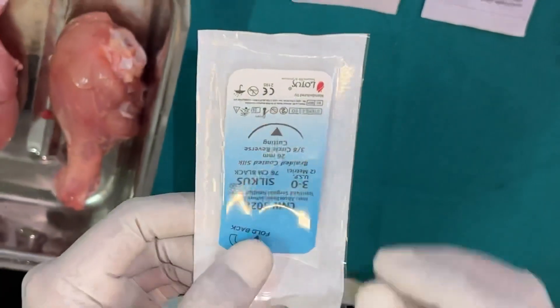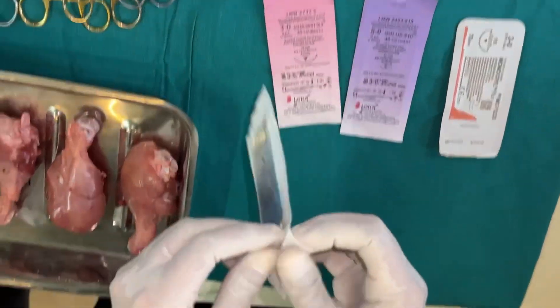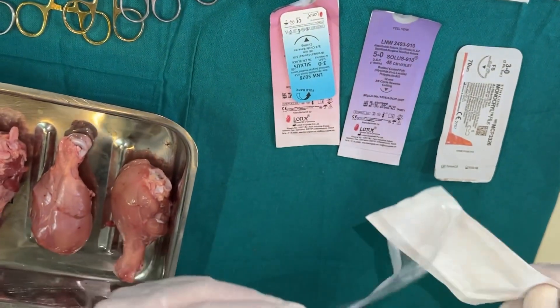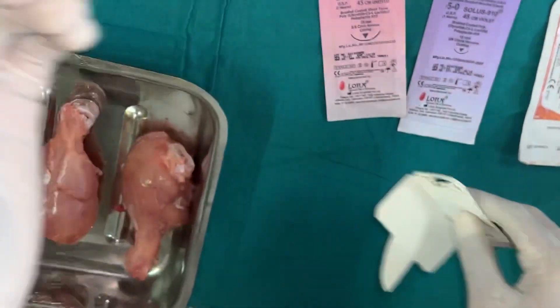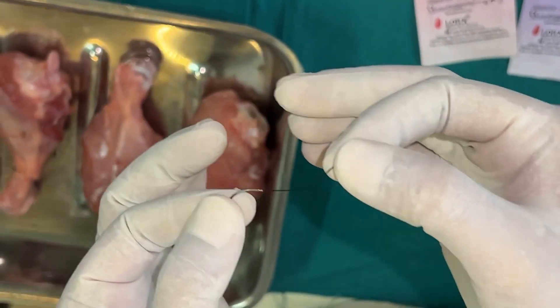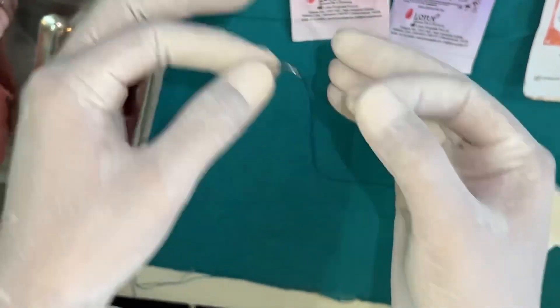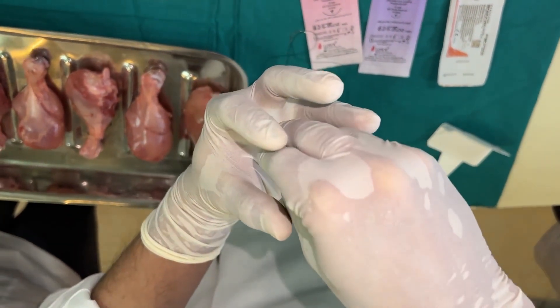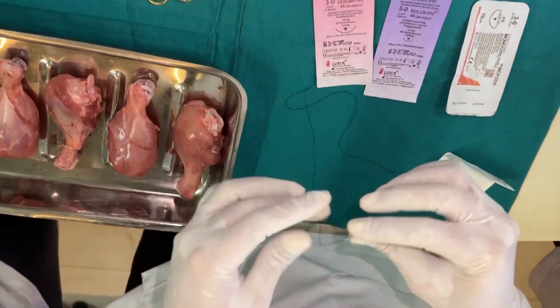This is a swaged suture material, meaning the needle does not have an eye. The outer packet is non-sterile and can be touched; the inner packet is sterile and should be placed directly on the surgical tray. Once opened, you can see the suture thread is attached to the needle — not by glue, but by swaging: the end of the needle is hollow and was compressed around the suture material during manufacturing.